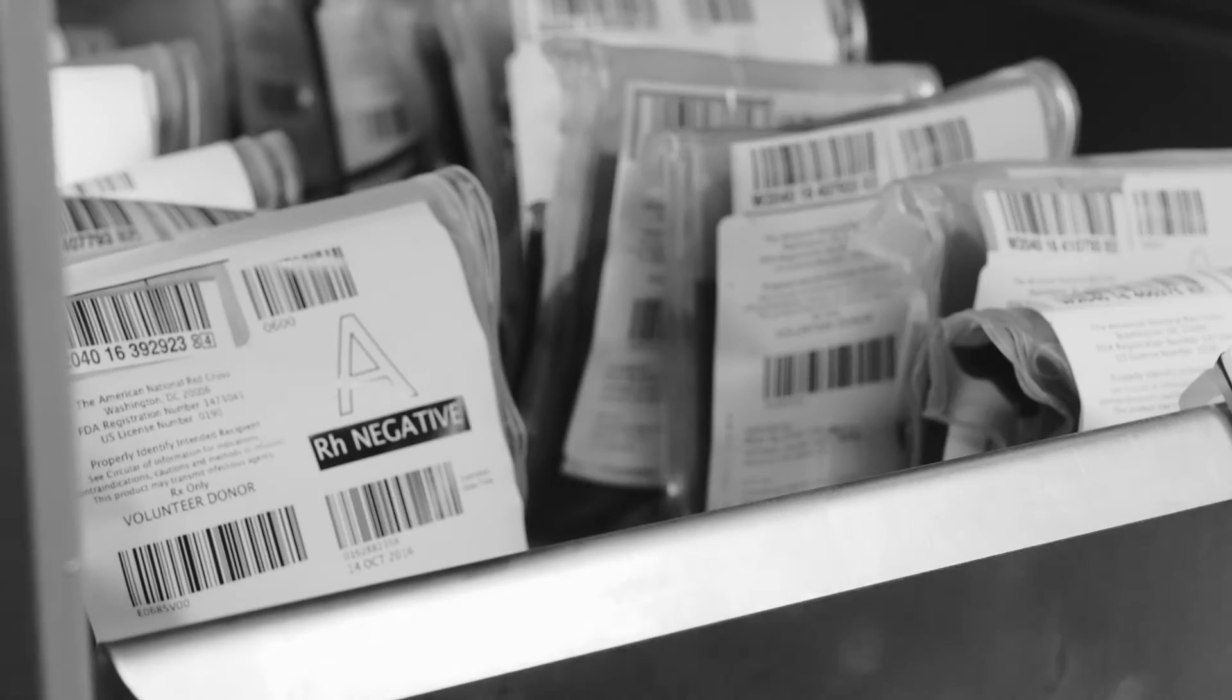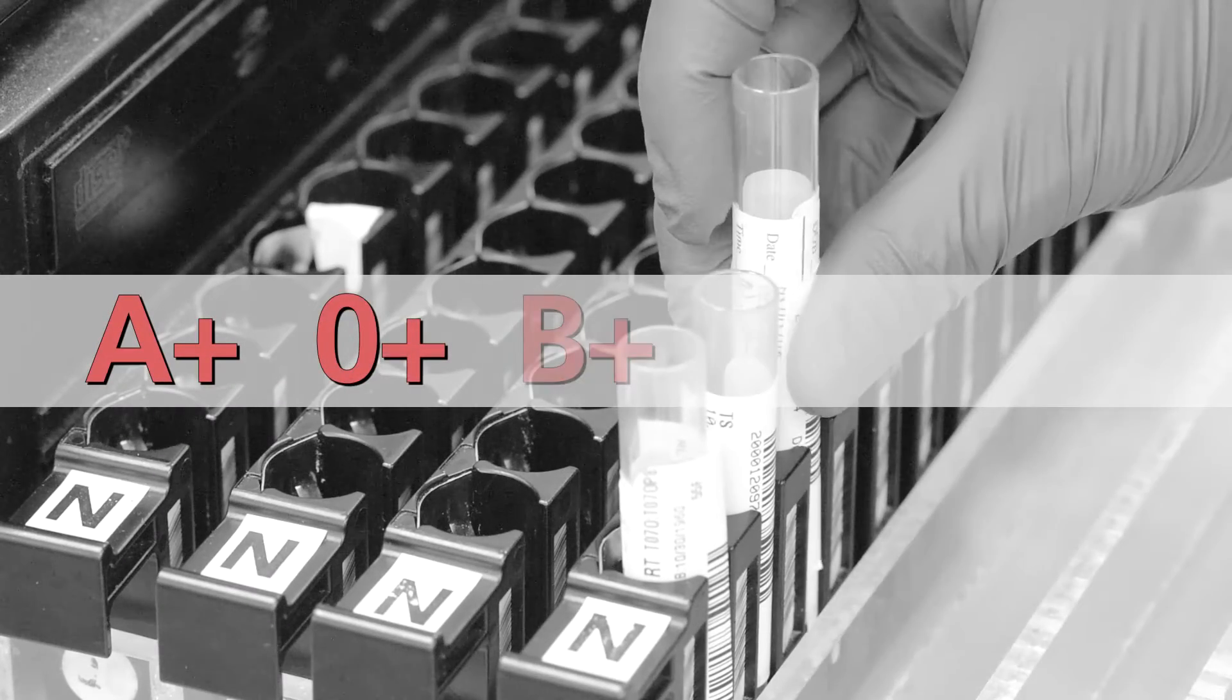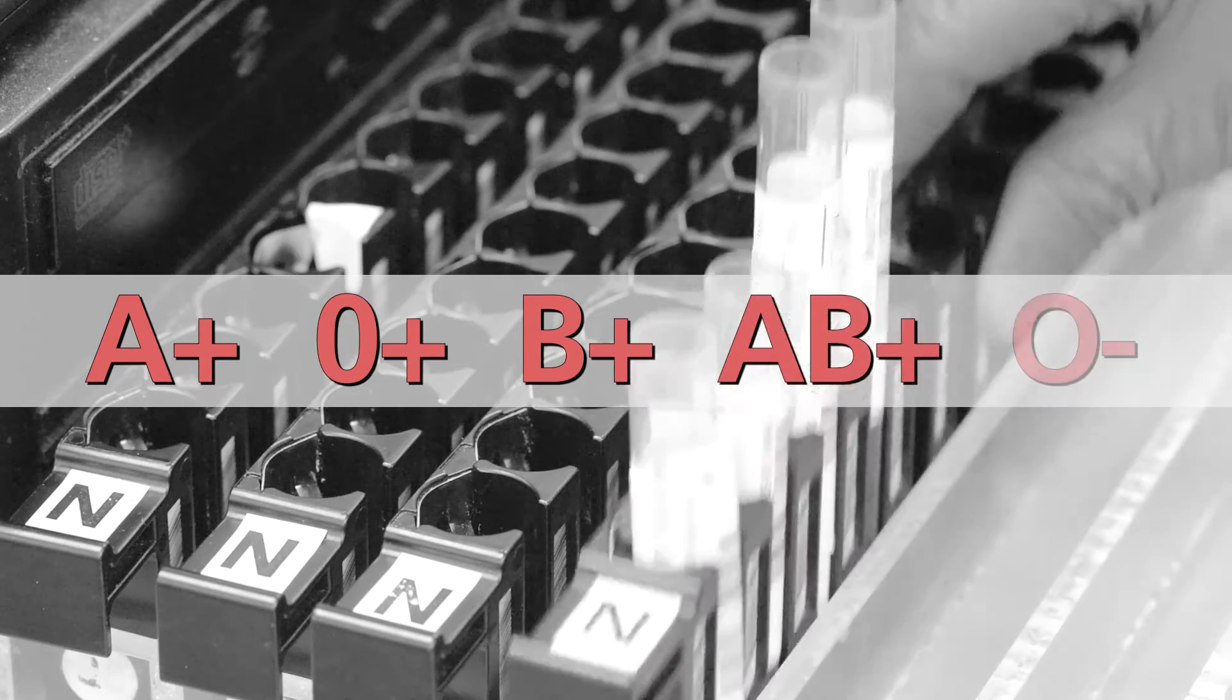We get all of our products from American Red Cross. A-pos red cells, O-pos, B-pos, AB-pos, O-negative blood.